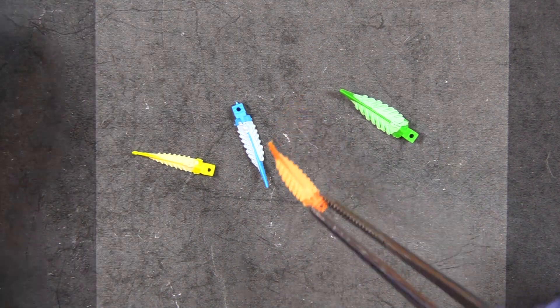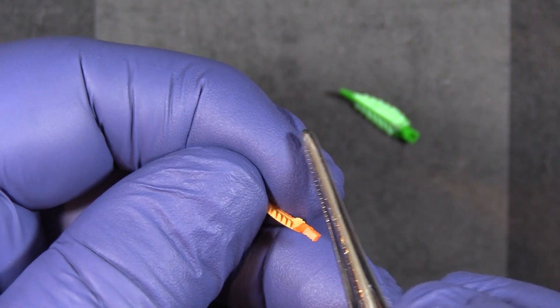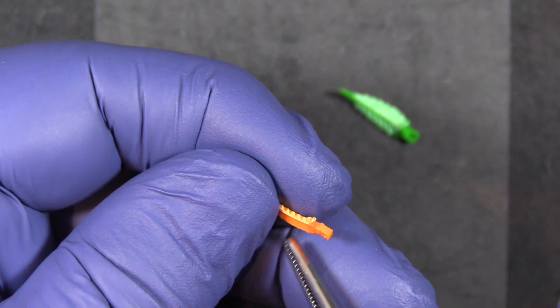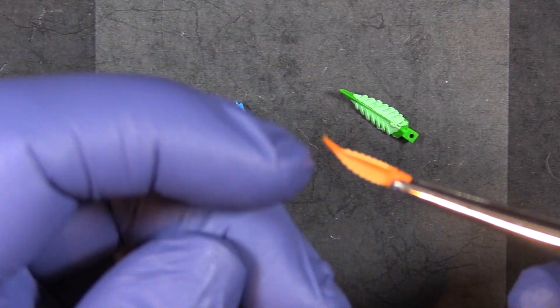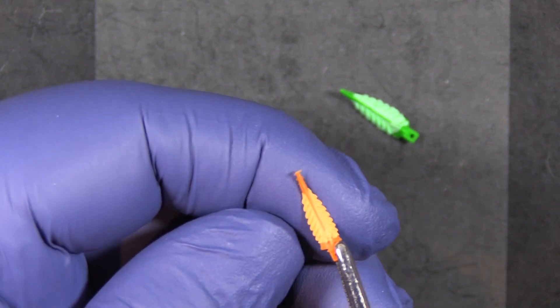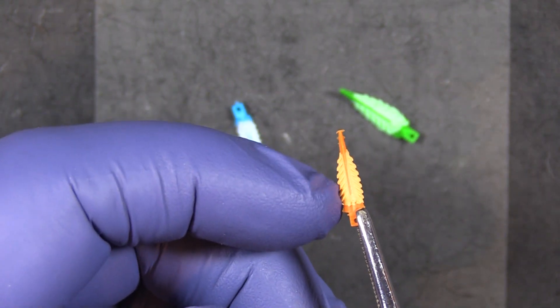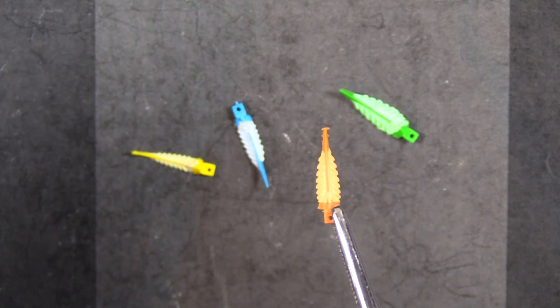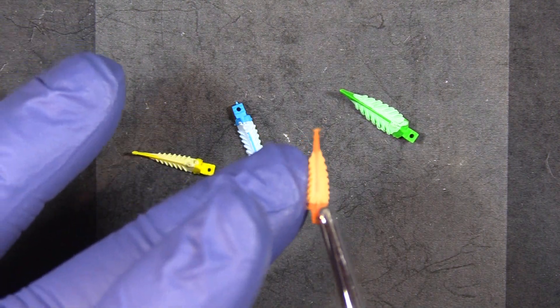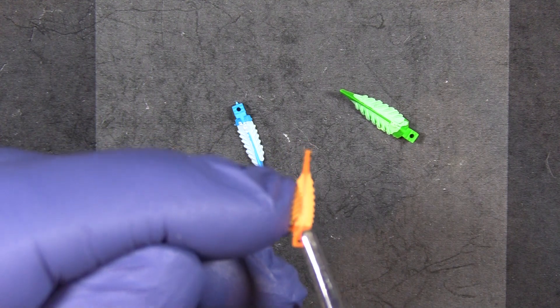The strategy wedges have a significant hollow area underneath to sit over the papilla rather than crushing it, with small fins on the sides to seal the band against the tooth. It's a two-part wedge: a firm plastic core in the middle and a soft TPE outer material with fins. The TPE improves adaptation to the interproximal space — if there's root concavity or anatomical irregularity, the flex allows it to follow that contour. Once through the interproximal space, the fins pop back out and resist dislodging.